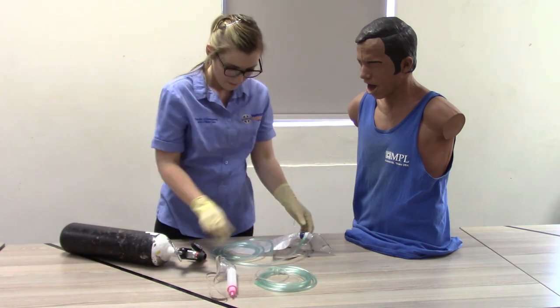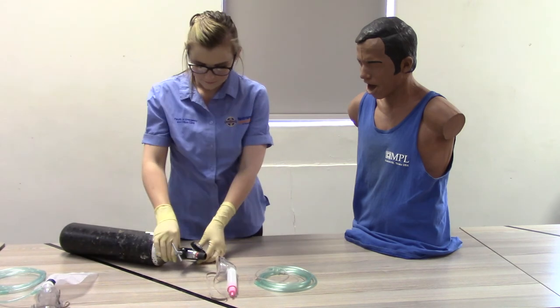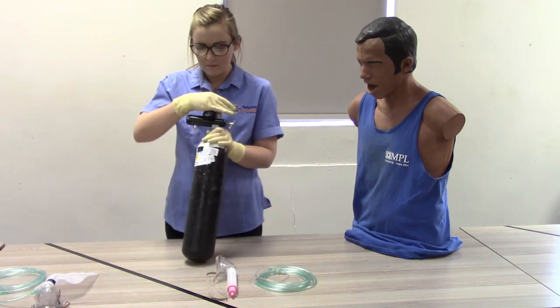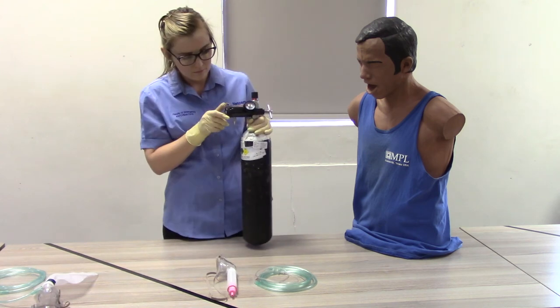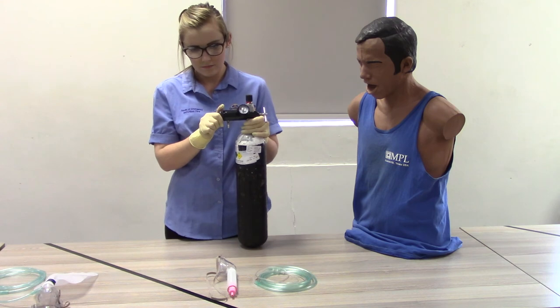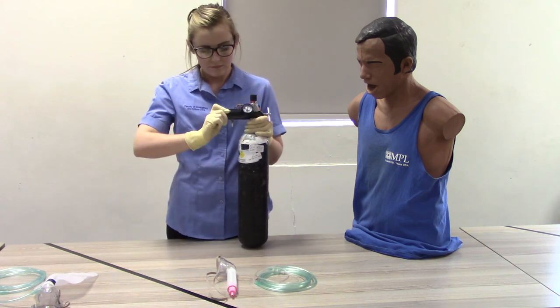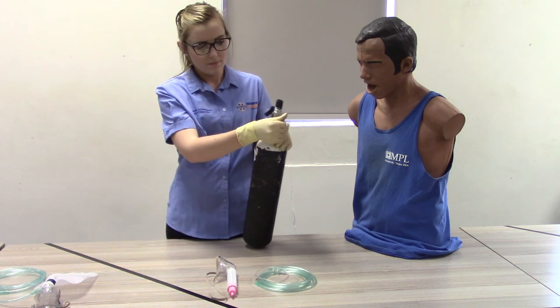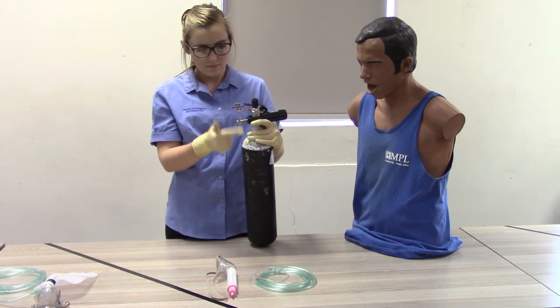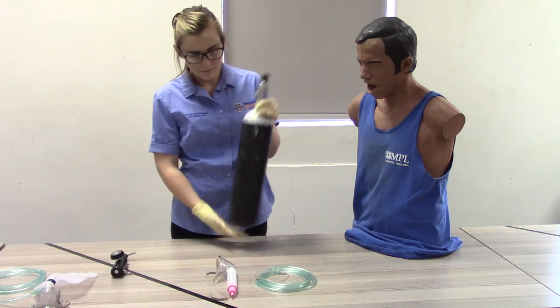Step 6: Disconnecting the pressure reducing gauge from the cylinder. Open the flow regulator to bleed pressurized air. Close the flow regulator and disconnect the pressure reducing gauge from the cylinder. Place the oxygen cylinder safely on the ground or a hard surface.